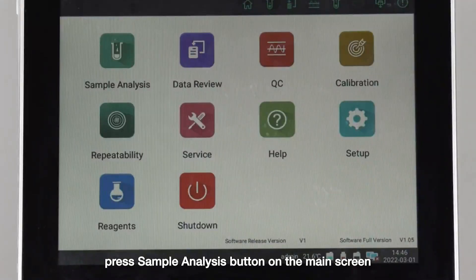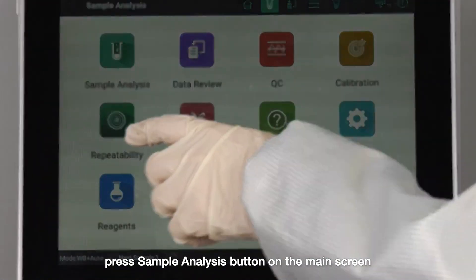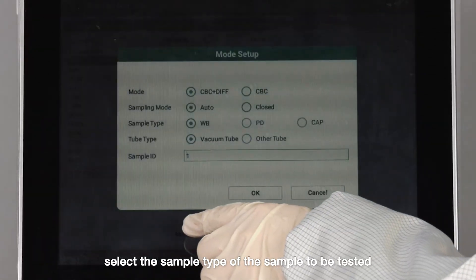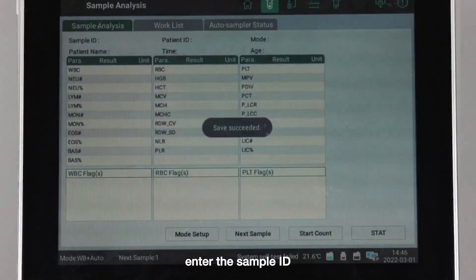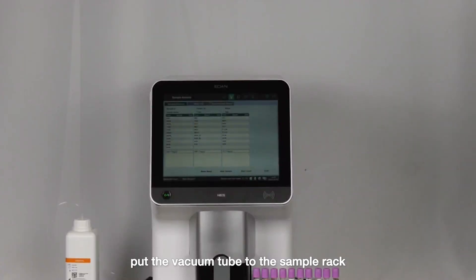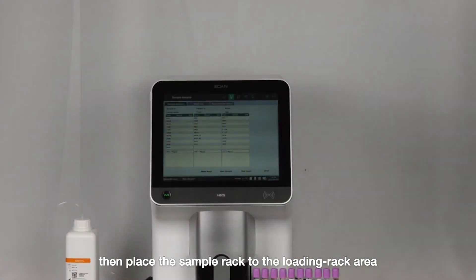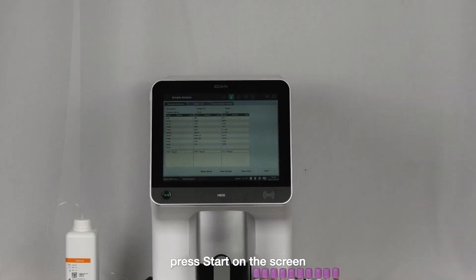Press the sample analysis button on the main screen, then press the mode setup button and select the sample type to be tested. Enter the sample ID, put the vacuum tube into the sample rack, then place the sample rack into the loading rack area and press start.